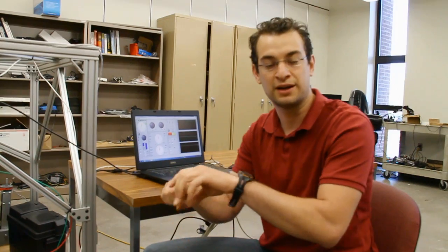in a backpack. Similar to a bicycle where cables go through a cable housing, we can have these cables going to the foot, which really lowers the inertia and weight. This allows us to custom build a prosthesis for each amputee, independent of residual limb length.